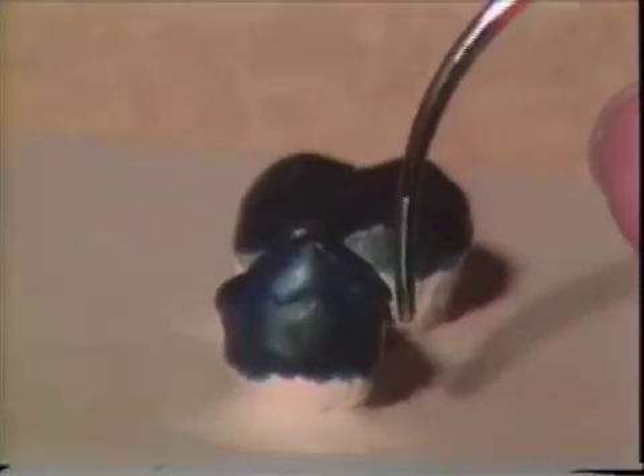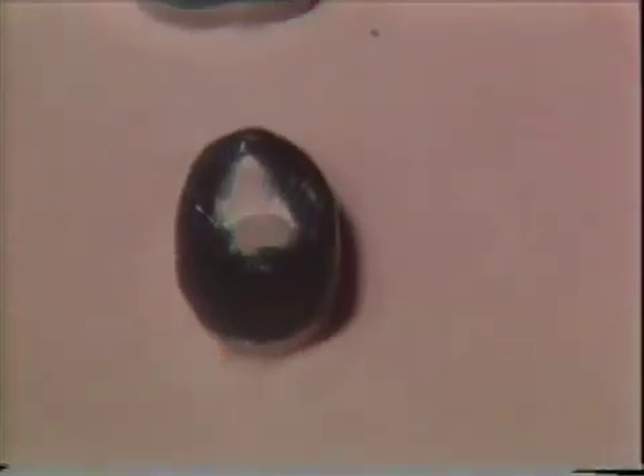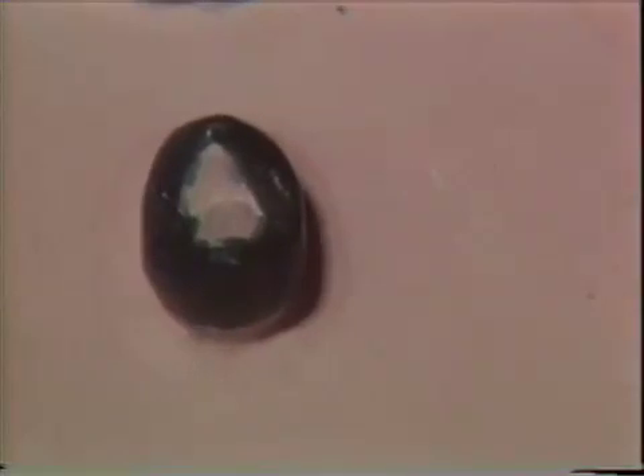Let's see if we can begin to show these corners starting to establish here. We obviously still need to smooth this all up, and that will require moving the card around beyond the range of this camera, so I'm going to go away and finish this off camera so you can take a look at it. We're back, having smoothed this all out now, establishing the normal contours. I'm going to tip this up just a little bit so you can see the height of contours up in the contact areas. You can see that the occlusal surface is essentially untouched. Don't worry if a little bit of wax flows over — you can carve it back, but a little bit of the color of the wax will stay, and that's not a big issue and it won't be graded down for it.